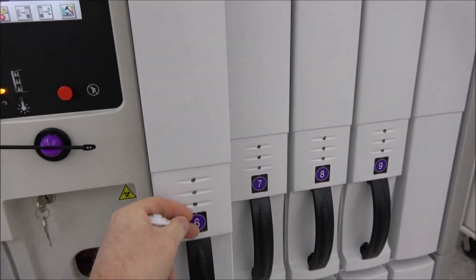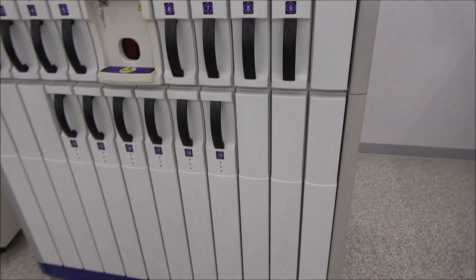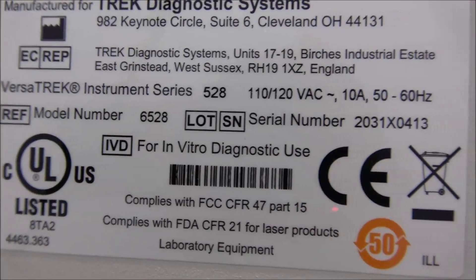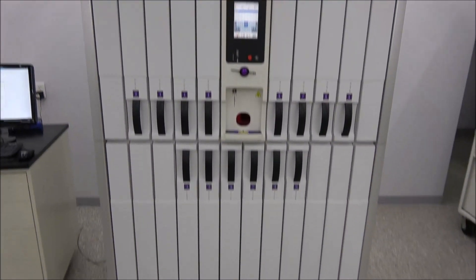There's plenty of storage room in here. It has a stylus here, which makes it a lot easier to do the touch screen. It's a beautiful machine — like I said, just came off the lease. I believe it's a 2013 model, just excellent condition. Let me do a walk around — you can see here. And just grab the tag on the back real quick.